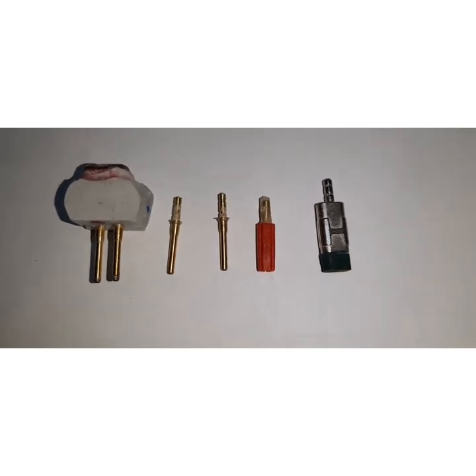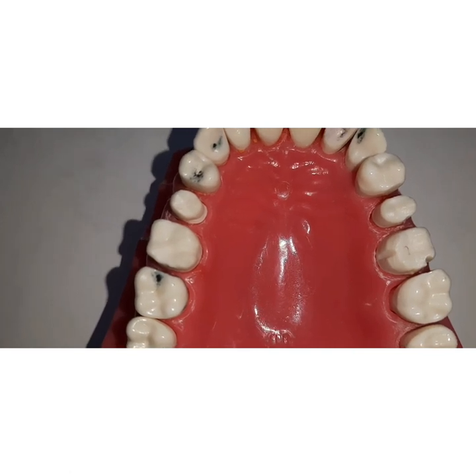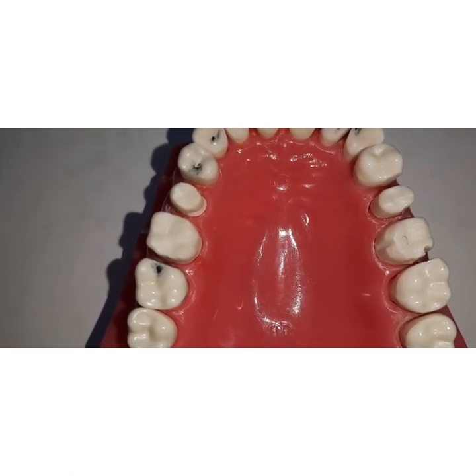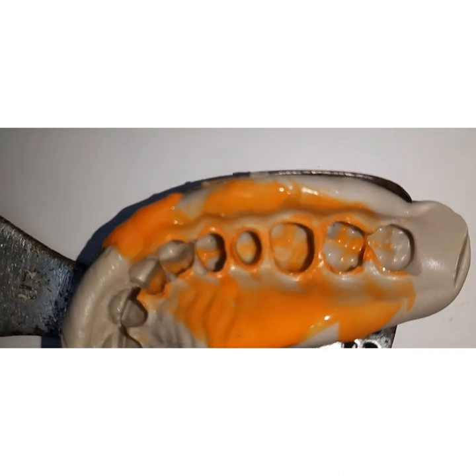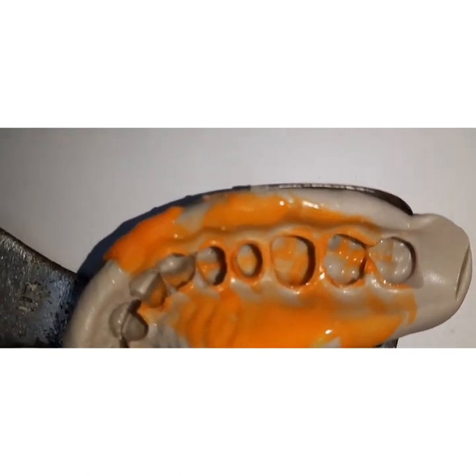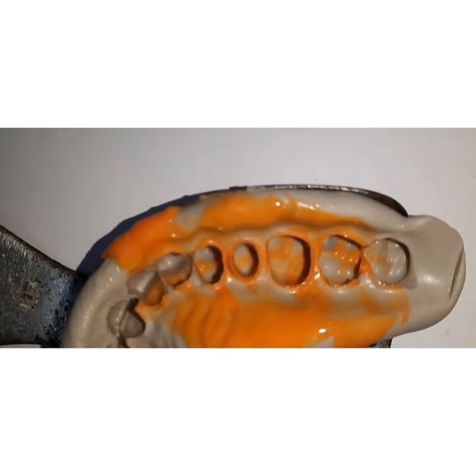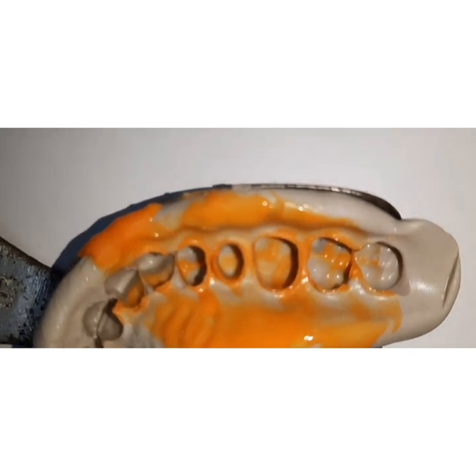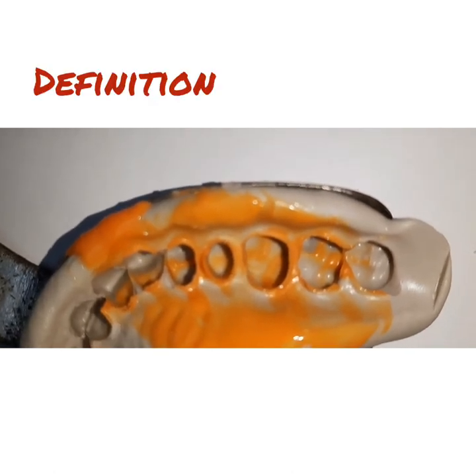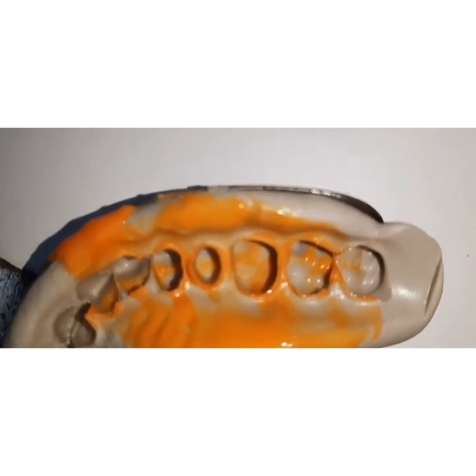Let us see what are the steps in short. Once you have done the preparation in the patient's mouth, then you are going to make an impression. Once you have the accurate impression in front of you, after that you are going to pour a die — that is, you can pour with a gypsum product or you can use any other type of die material. A die by definition is the positive reproduction of the form of a prepared tooth in any suitable substance.